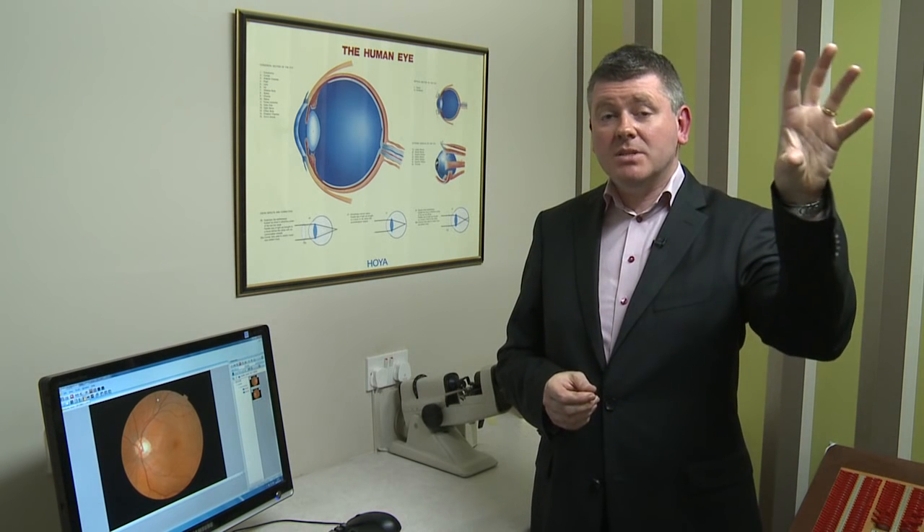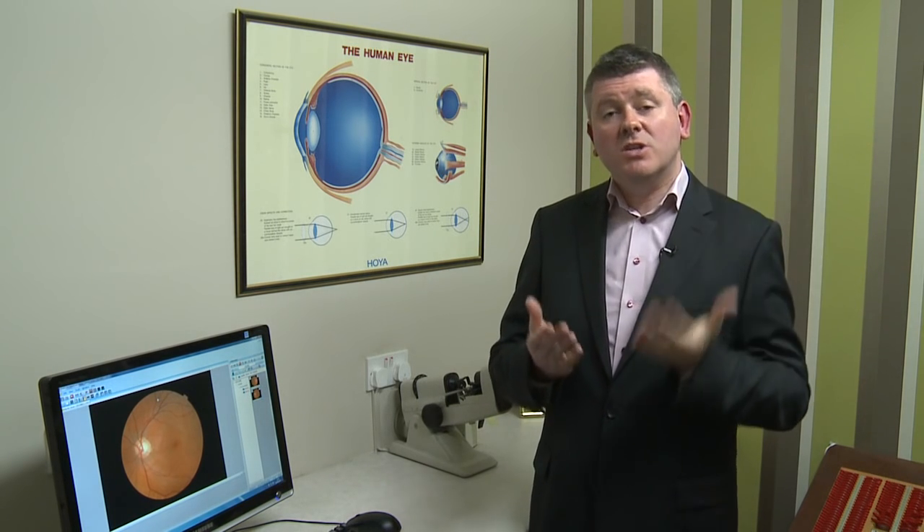The outcome is colored lenses, which may have a prescription built into them or may not — namely glasses for distance, or if needed, special reading glasses. We also work a lot with prism-controlled bifocals, which are a form of dual lens, as well as special multifocal lenses for children.